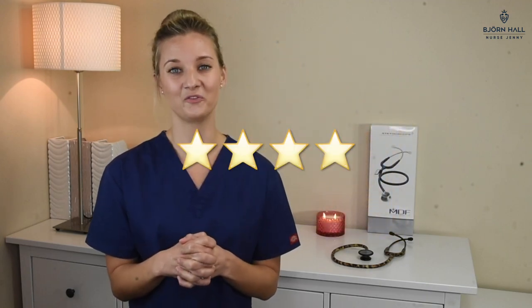The acoustics of this stethoscope are quite good. However, when I used it, I found the tubing a little bit too long, so it was rubbing against things around it — such as the bed linen, the patient's bed, the patient, or my arms. So in that instance it can't get the highest score, but it gets a good score of four out of five.